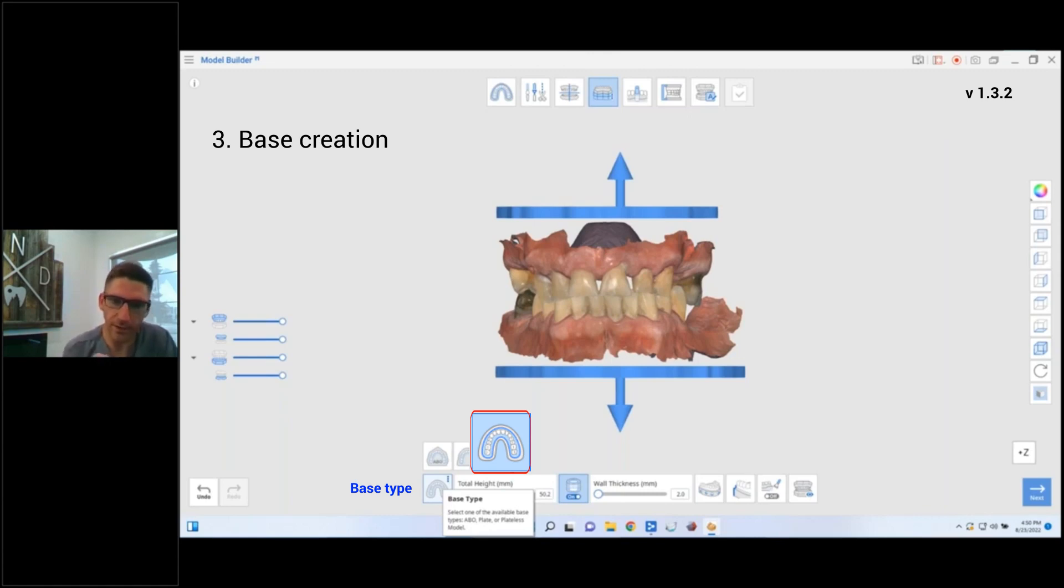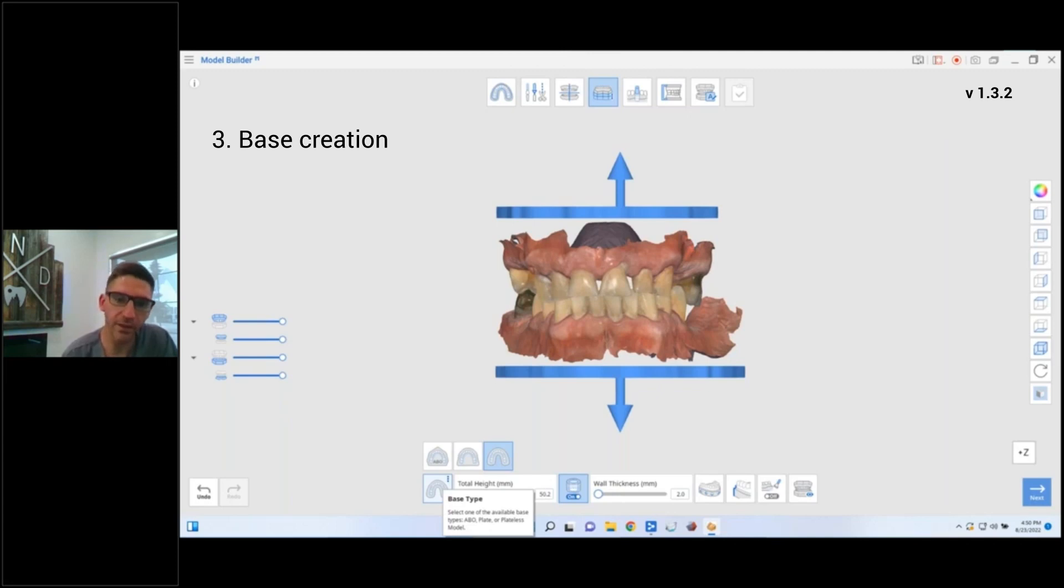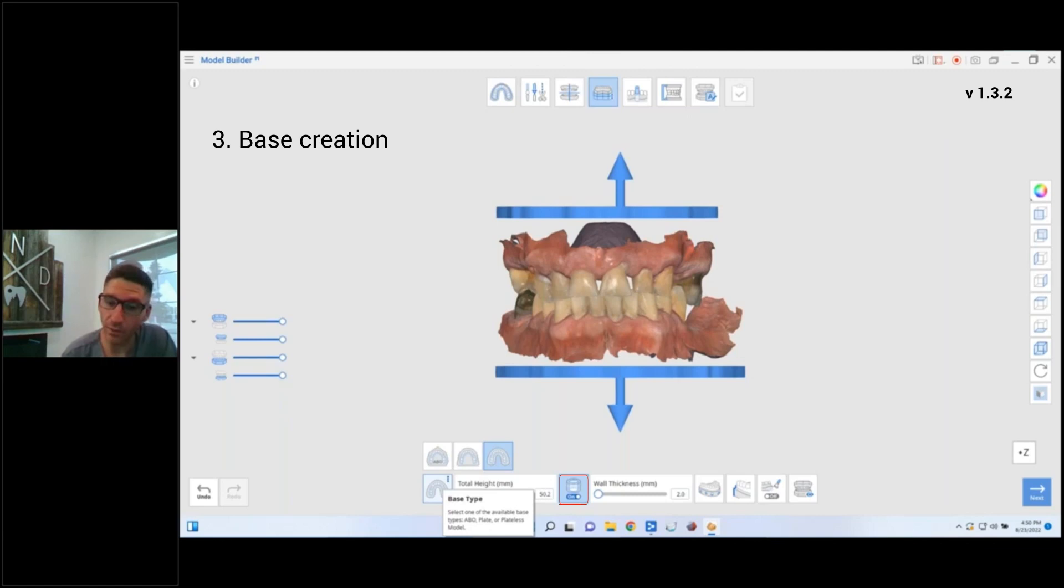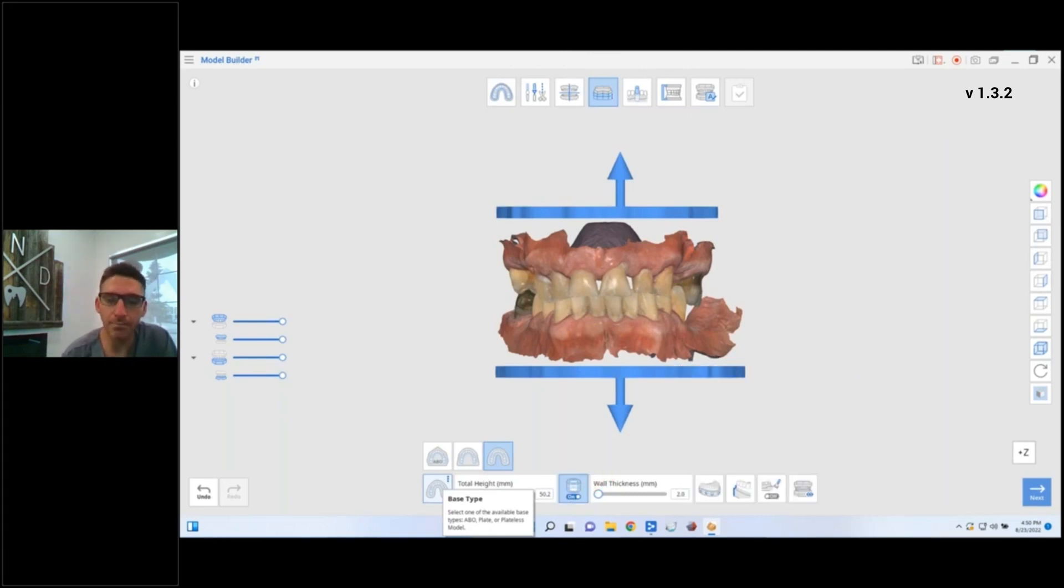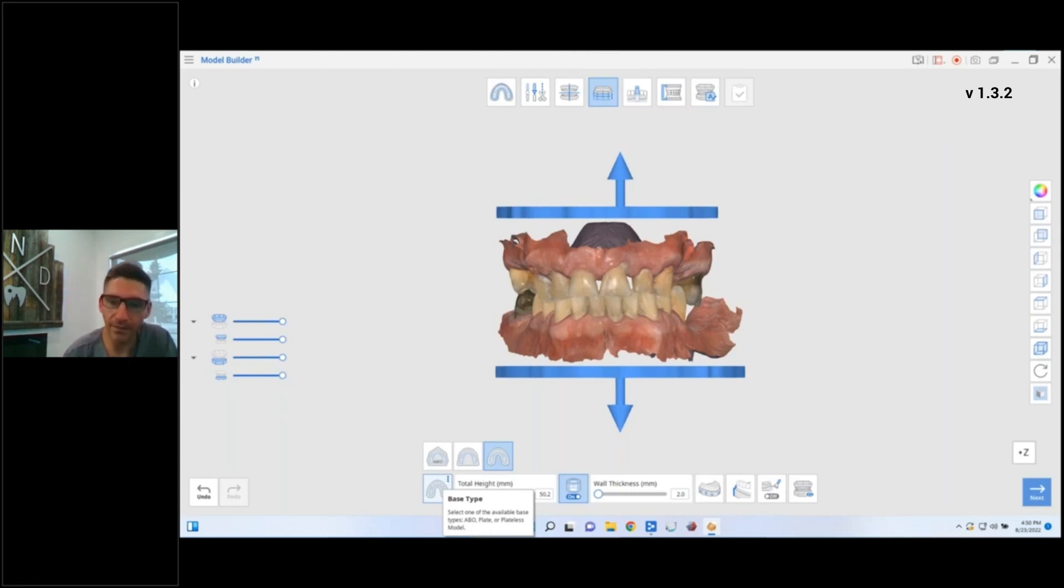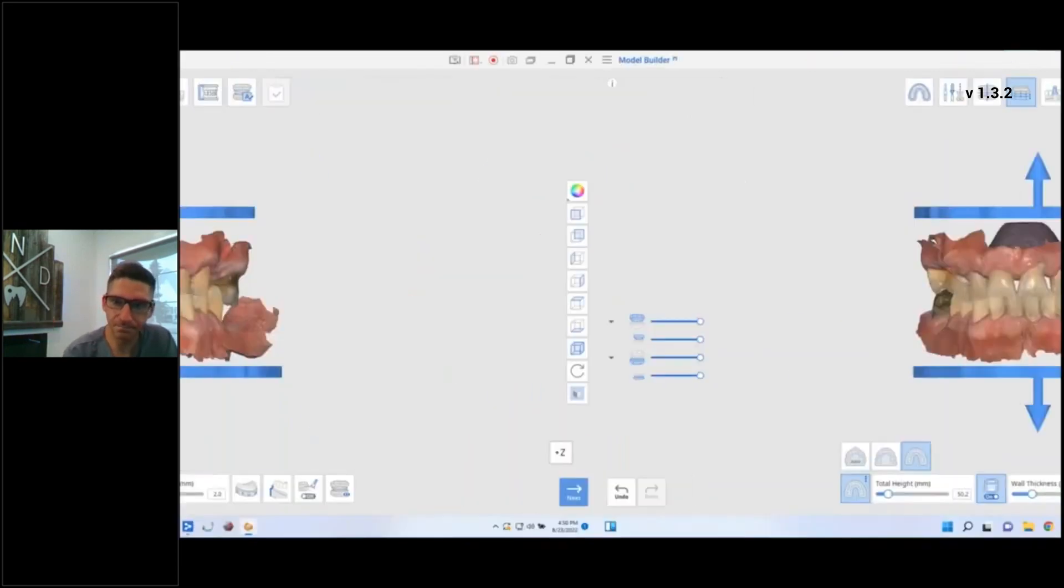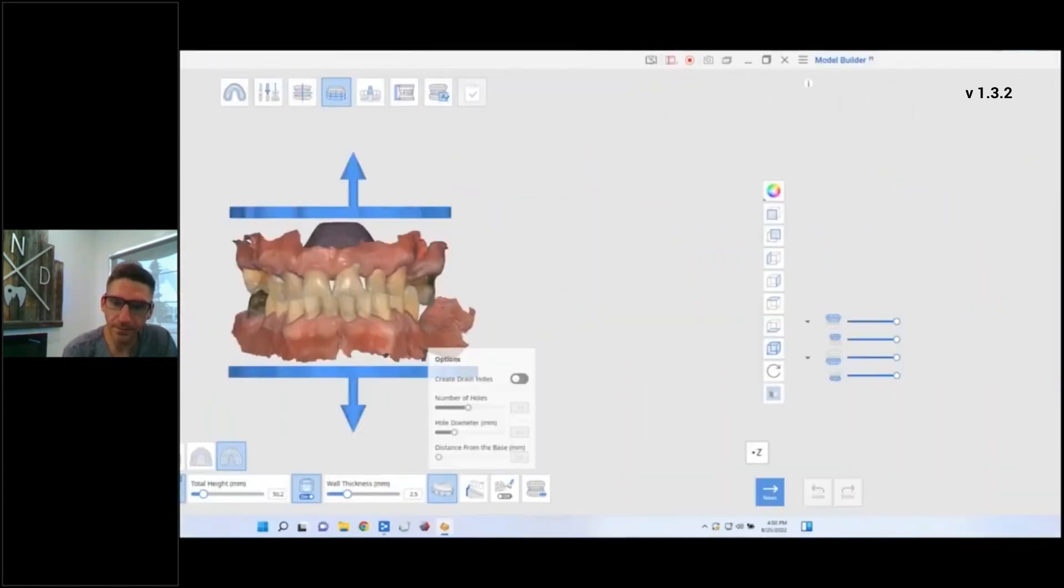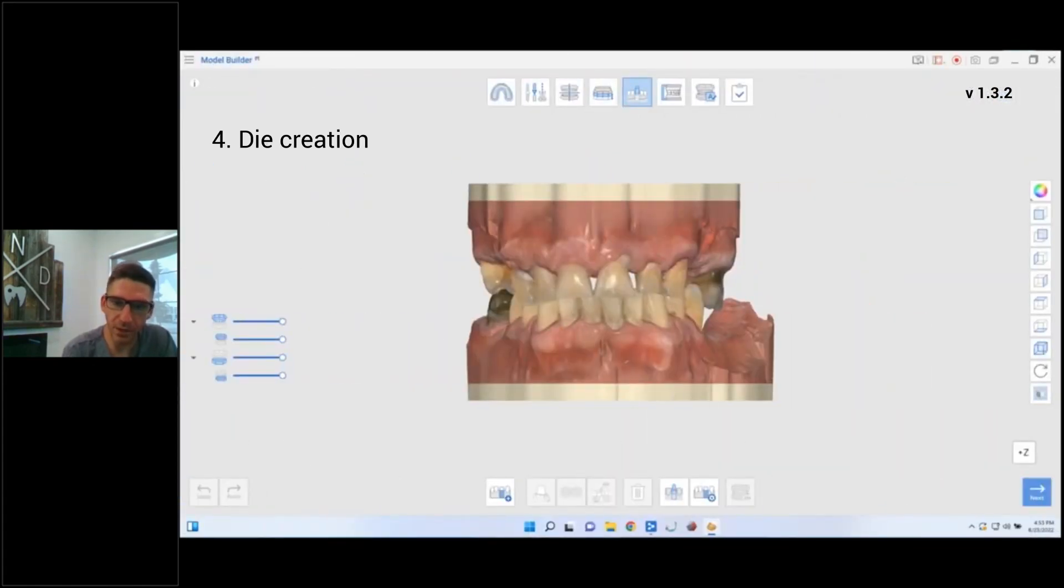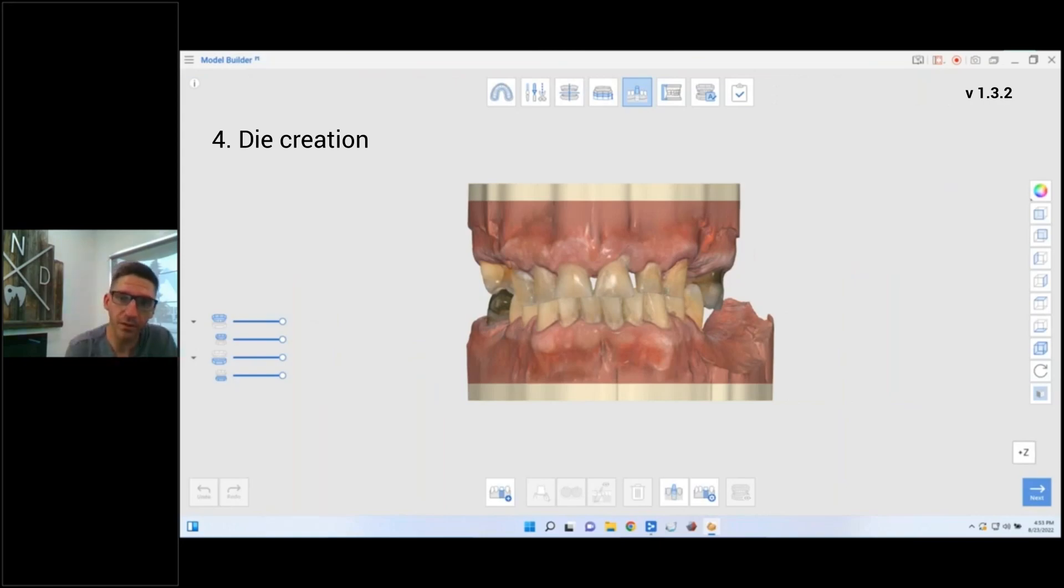So depending on what you want, you can pick different things there. You can adjust the height of the base of the model, if you are going to make it hollow or not hollow, and I'll show you later doing it not hollow for a design scenario. How thick do you want it? Do you want vent holes? Are you printing it right to the base? And then do you want a beveled edge so it's easier to clean off that face?